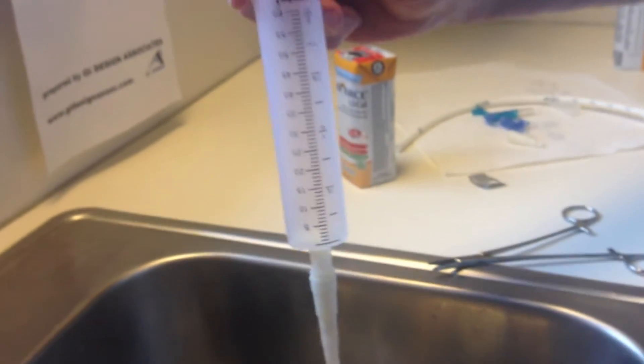It took 80 seconds compared to approximately 26 using the standard connector.